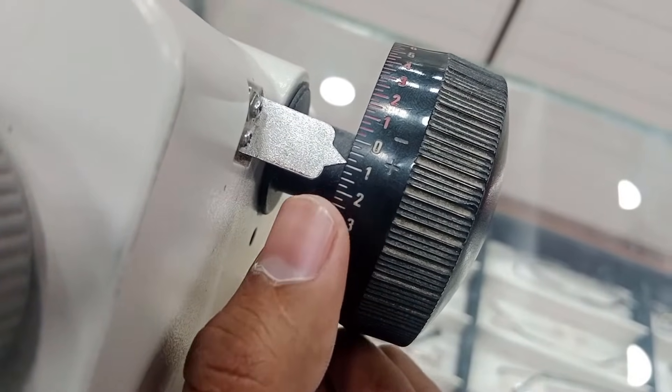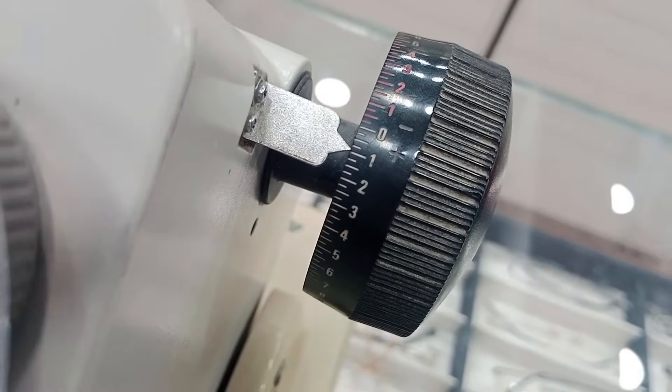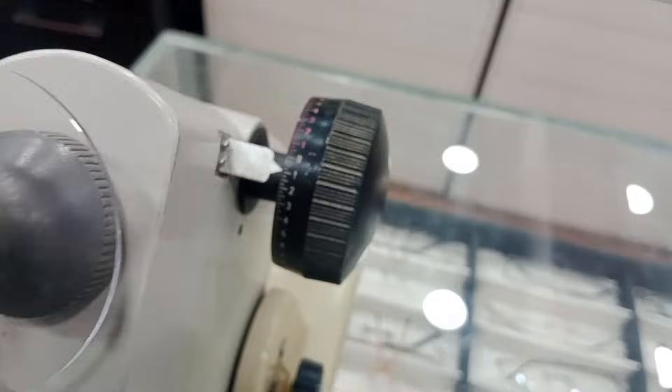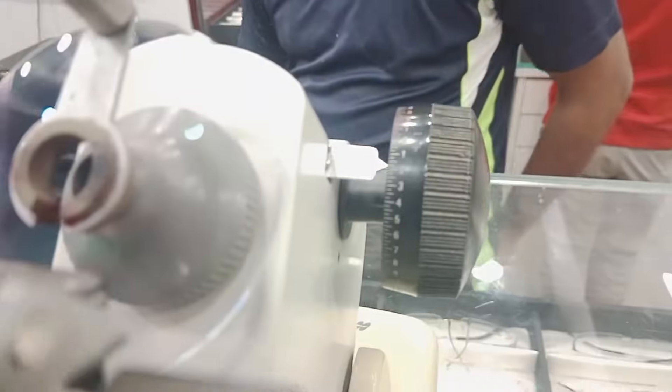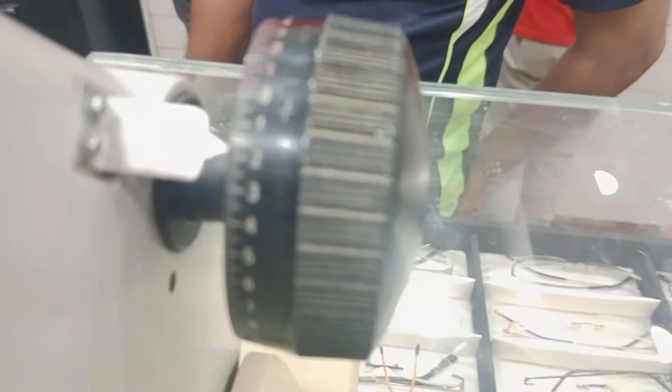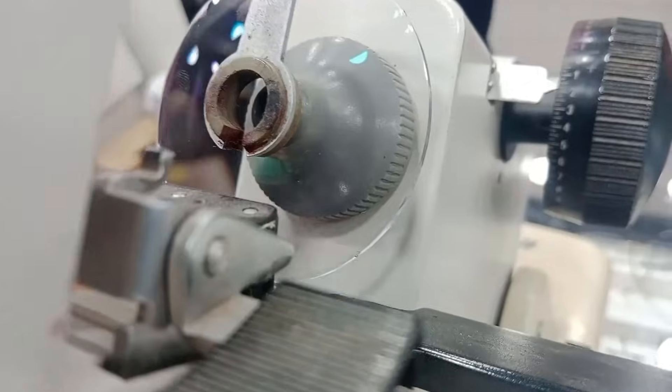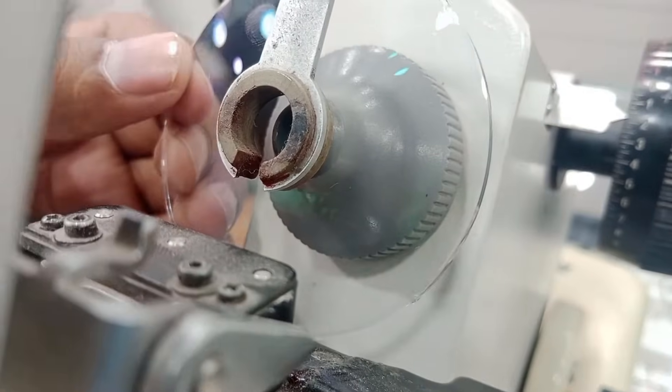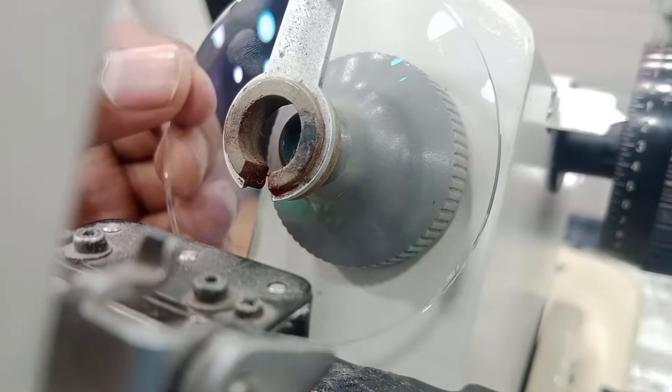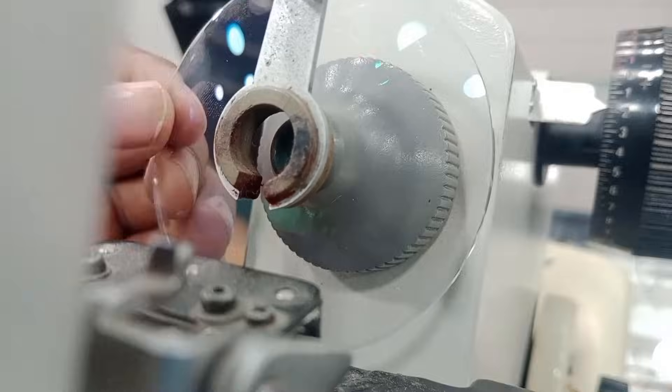So I have to clear the first meridian. So it is clear at plus 1. Now let's clear another meridian, and the fellow meridian is clear. This is in sharp focus. It's clear at almost 1.75. And now I will rotate the lens to mark my desired axis.